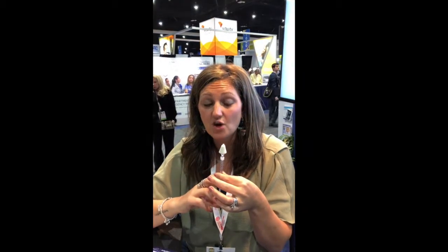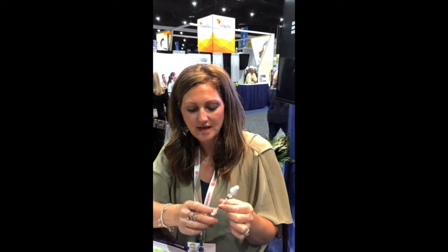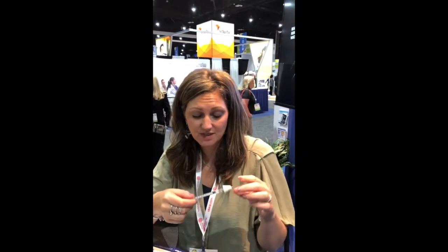When you go to distribute the medication, you need to do so in a very quick, rapid motion. So the motion is going to be something like this, which creates a super fine mist that's going to go inside the nose. You might want to warn the patient before you do it because it might be a little bit of a shock to the system. One of the nice things about using an atomizer is that you can really put it on any syringe that you want.